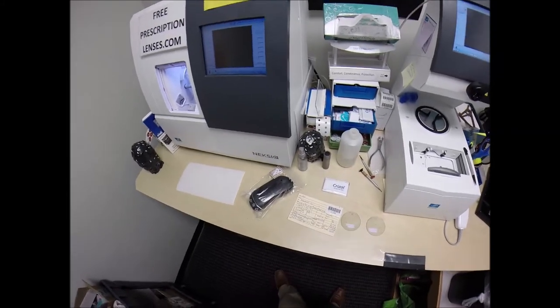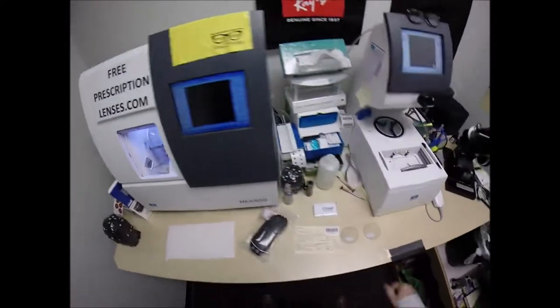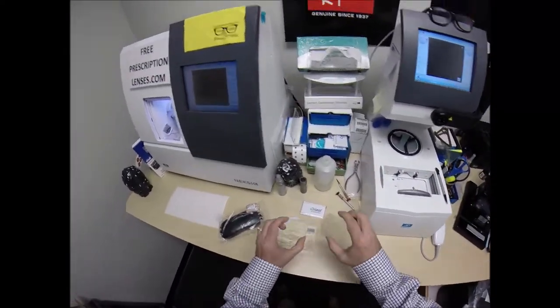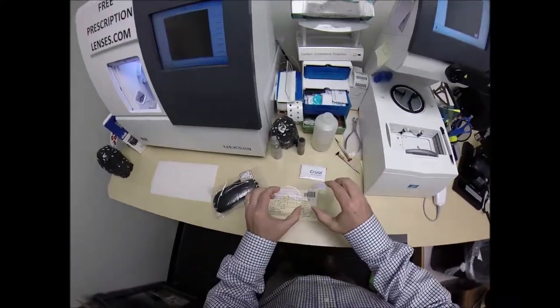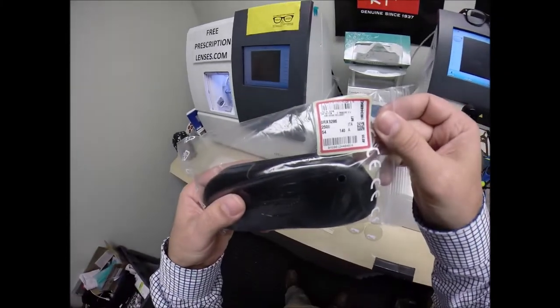Hey Mo in Beaumont, California. See more better with freeprescriptionlenses.com and today I am going to cut the invisible bifocal with Transitions Extra Active Green and Crizal Anti-Glare for your Ray-Ban 5286.